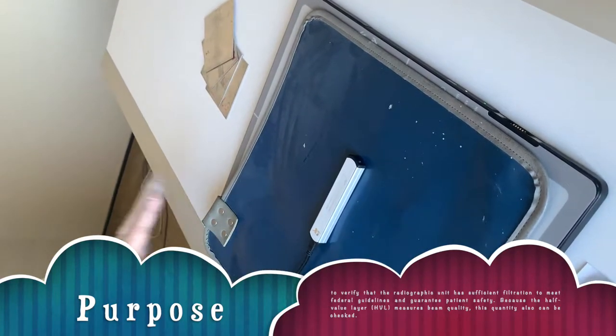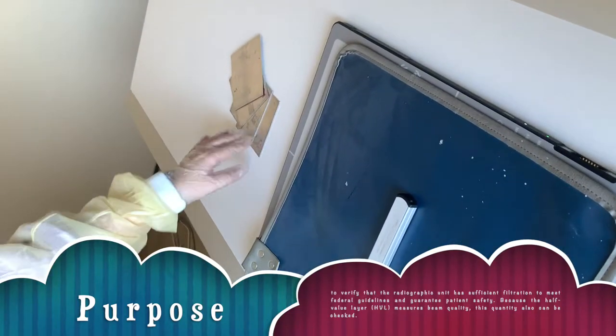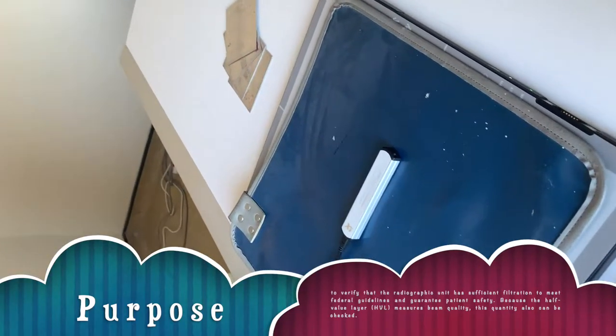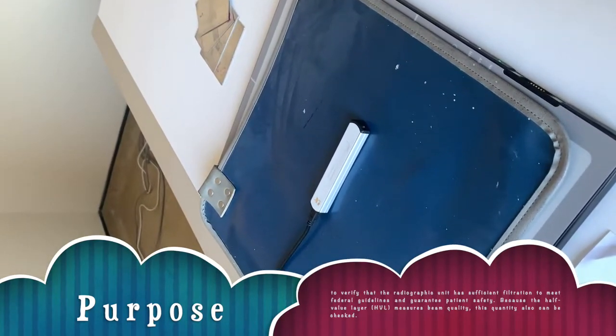For this experiment, we need a dosimeter, aluminum attenuator sheets, the X-ray generator tube, and a lead vinyl.